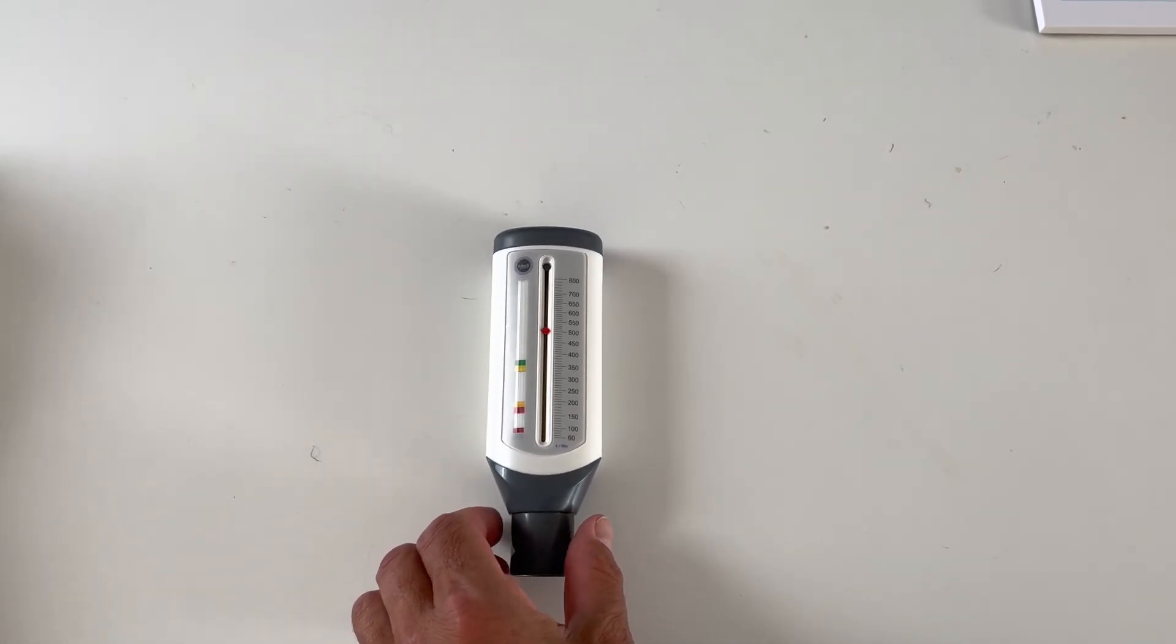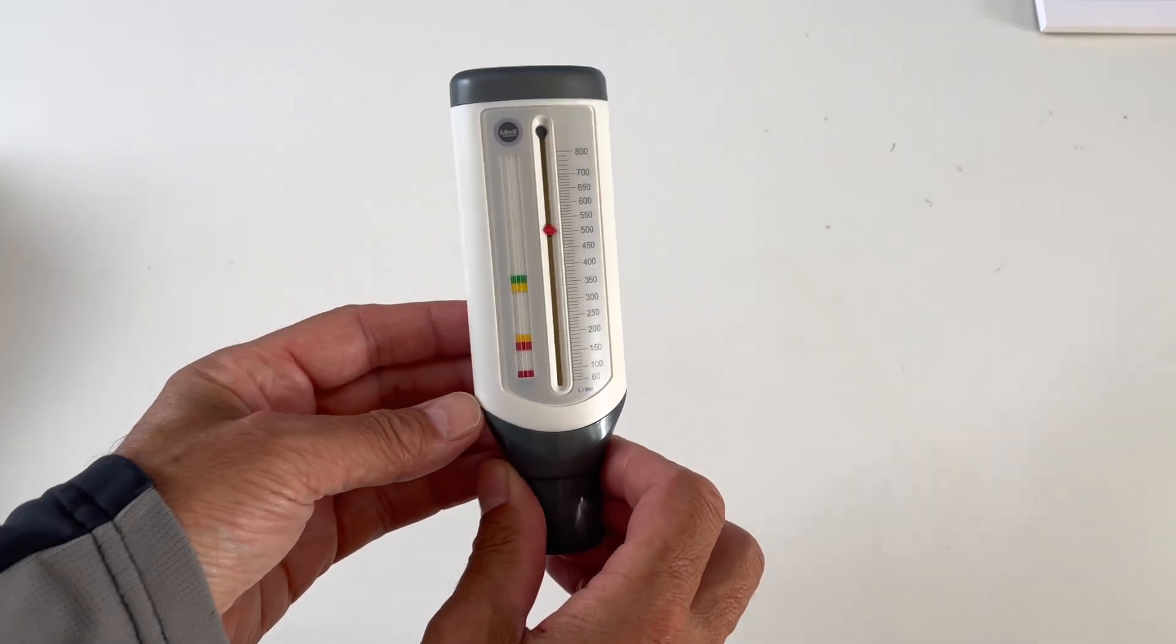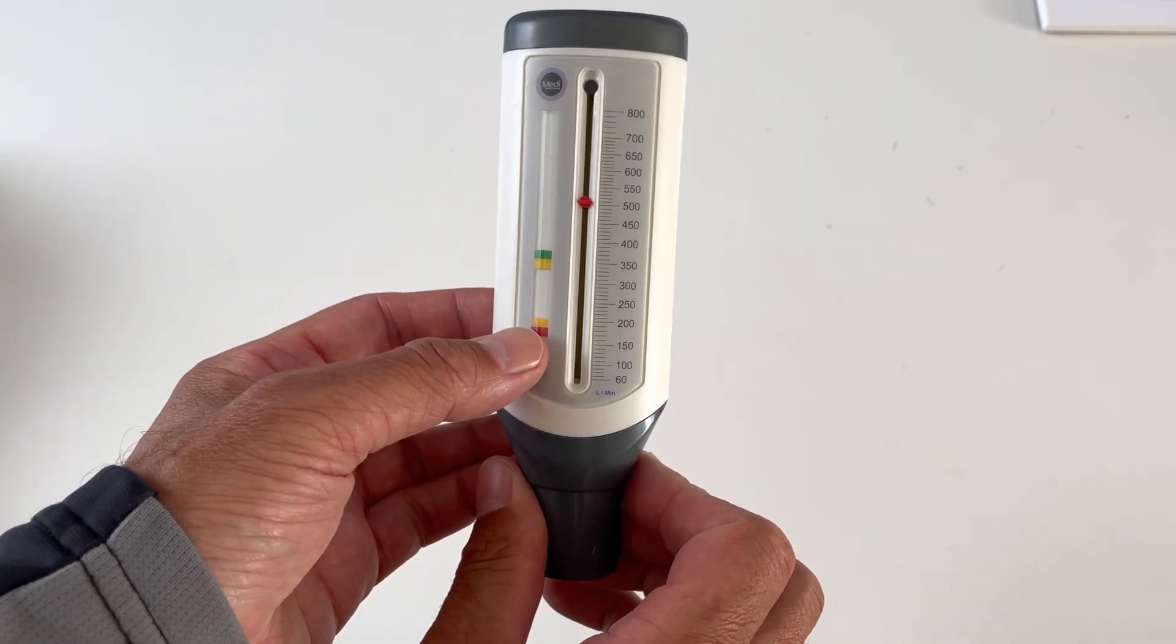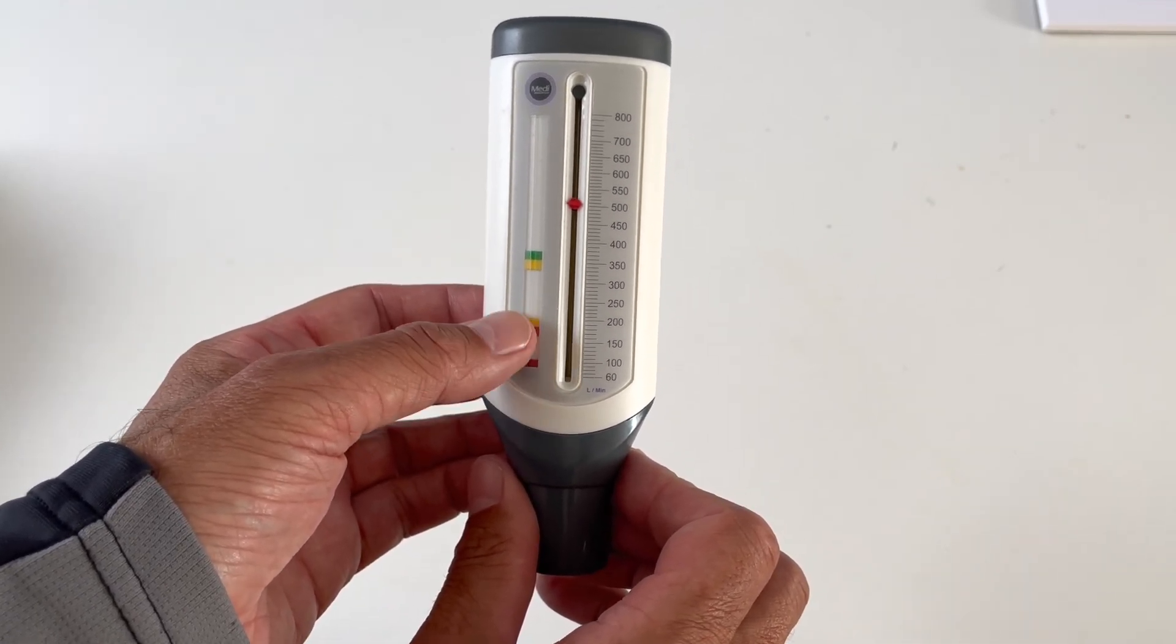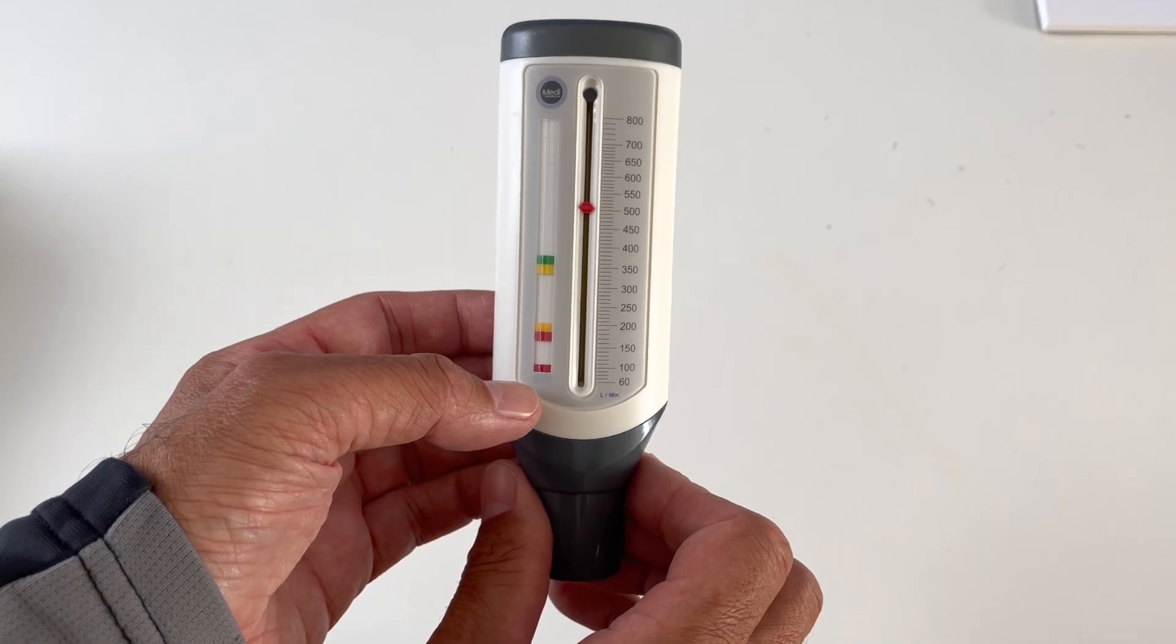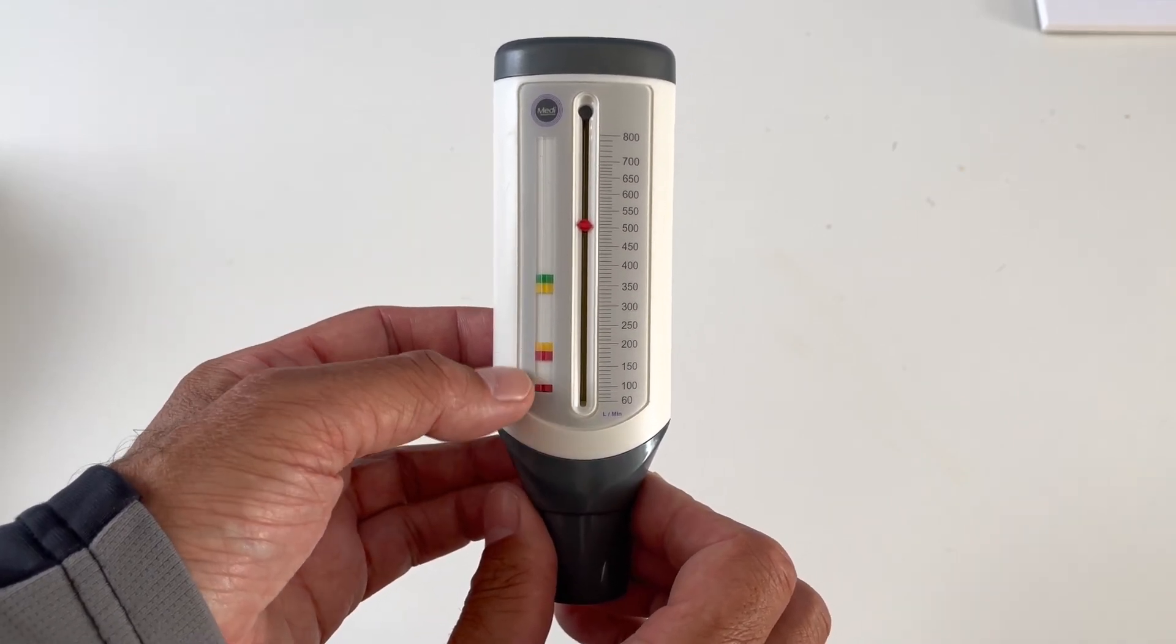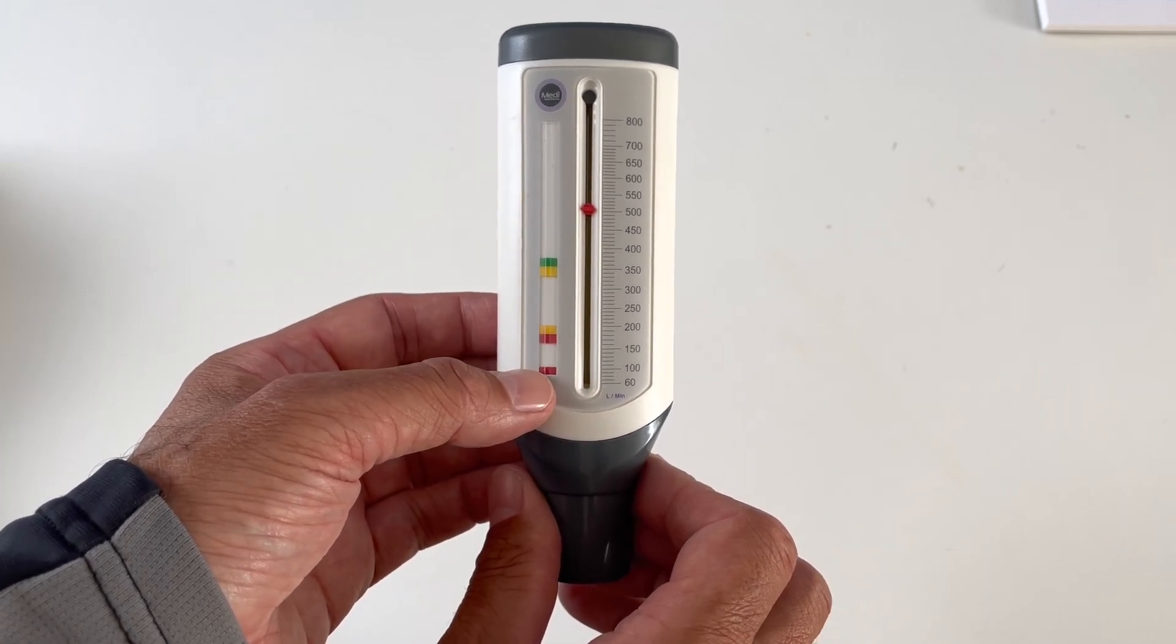Now, I did notice there are these other scales here on the actual device, and I think there's one at 100 and something like below 200. And I think these are the two points where, according to the UK Asthma Association that I've looked upon, these are people who are having a much greater degree of breathing difficulty than myself.